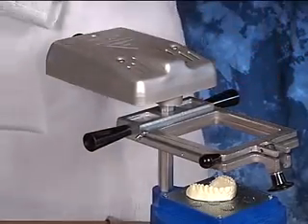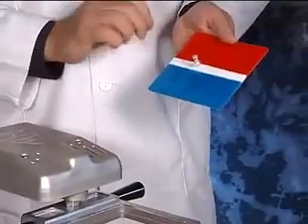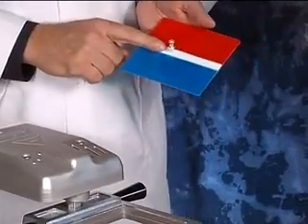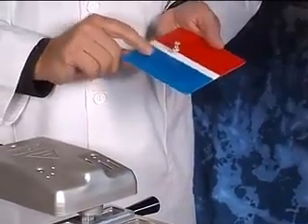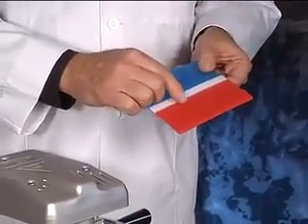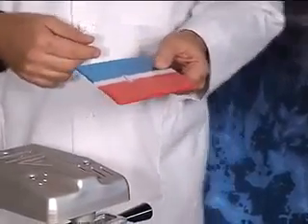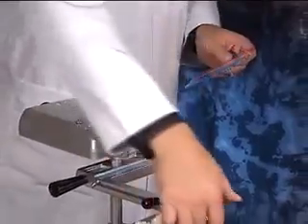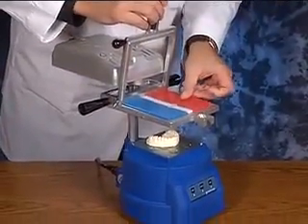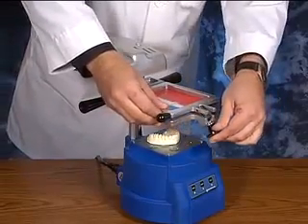While that's going on, we'll place our material. You'll notice I have a little technique where I take a stick pin and position it in the center of the logo, because logo positioning with the Pro Form off-guard material is very important. That logo actually relates to a strengthening area in the product which will help the anterior section against impact. So I place that little stick pin in there and stick that in the frame.